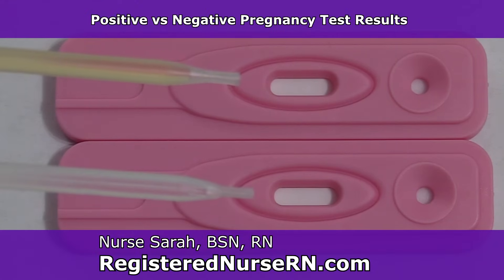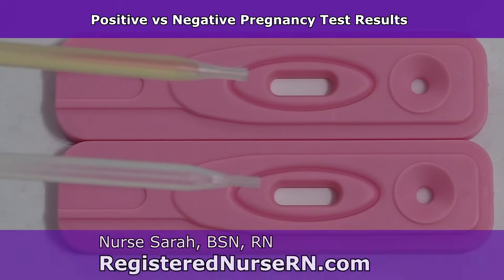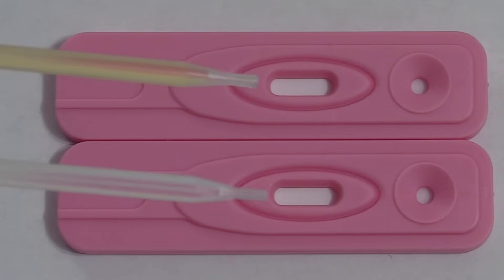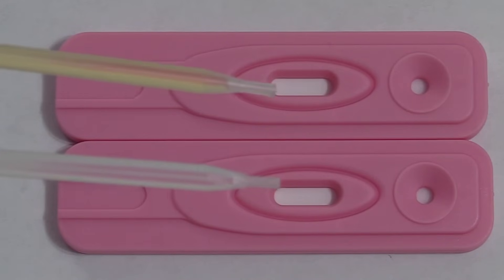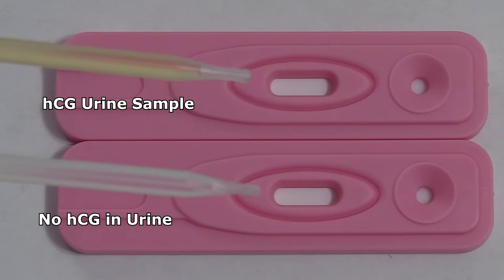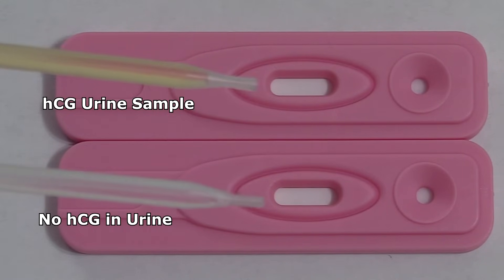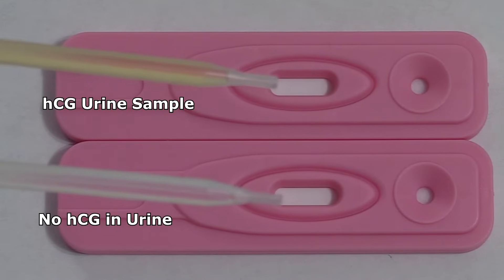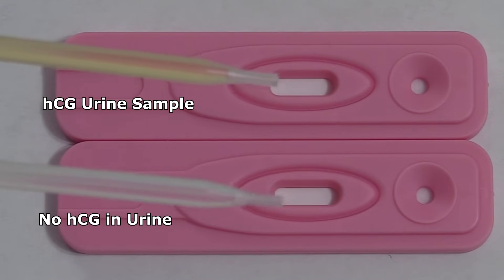Here we have our droppers and they contain our urine sample. We use the droppers that came with the pregnancy test to withdraw the urine. In this top dropper we have urine that contains HCG — I know that because it's my urine and I'm pregnant. This bottom dropper contains urine that does not have HCG in it; it comes from my husband, so he shouldn't have HCG in his urine.